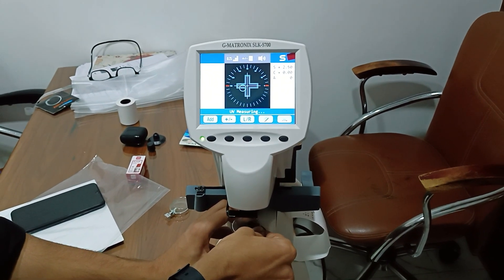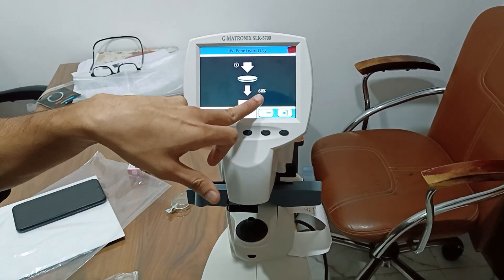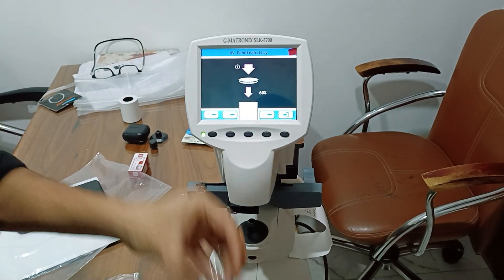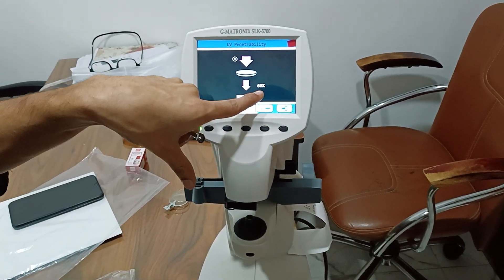I am taking UV protection — 60% is shown. It means the lens has only 40% UV protection, and 60% is not available — meaning 60% UV is passing through the lens unblocked.